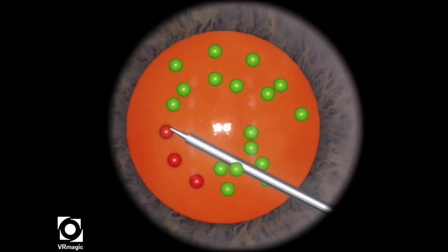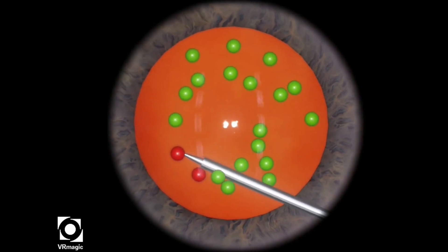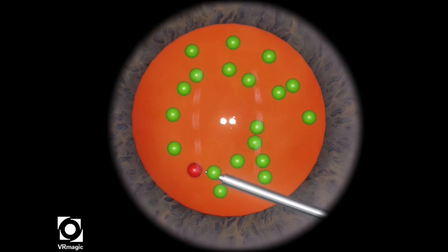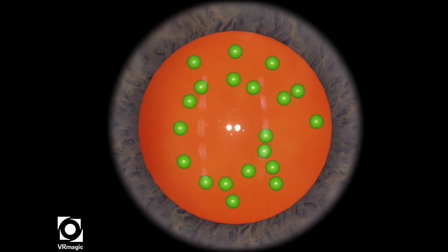So a very simple maneuver here. The only difficulty would be the sheer number of spheres so that if you make a mistake, you want to start over if you want to get 100.